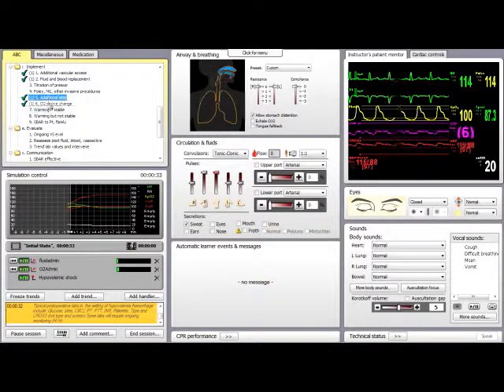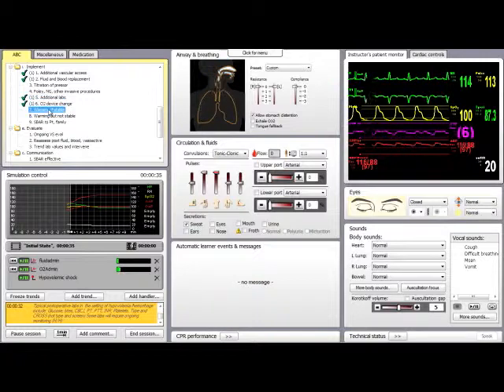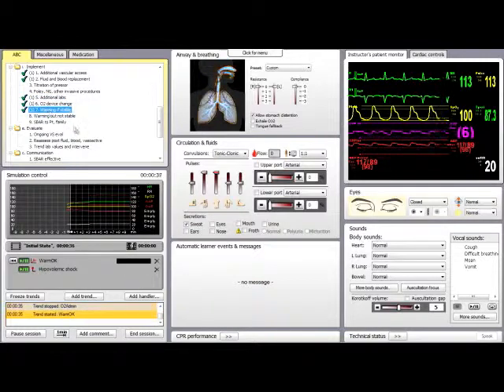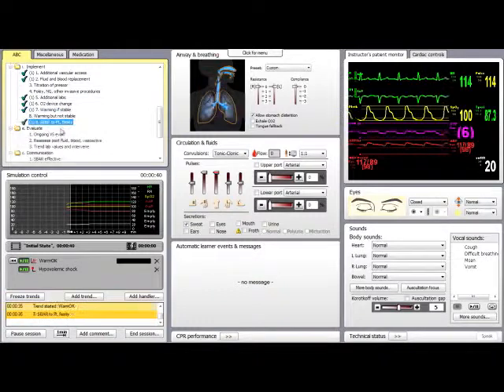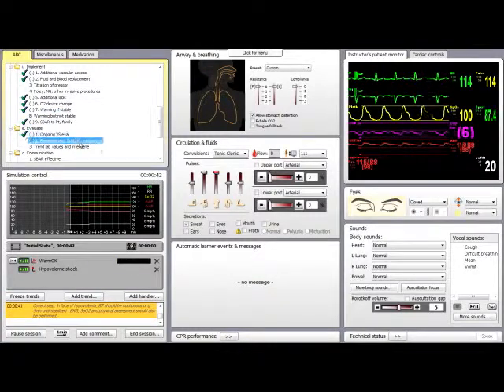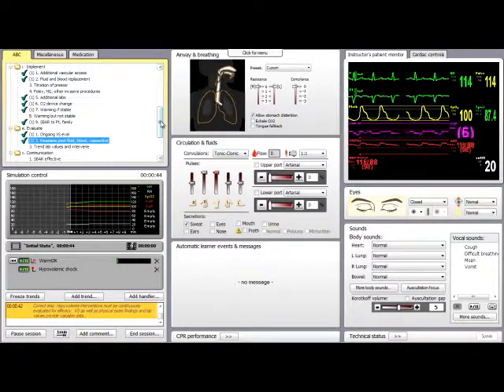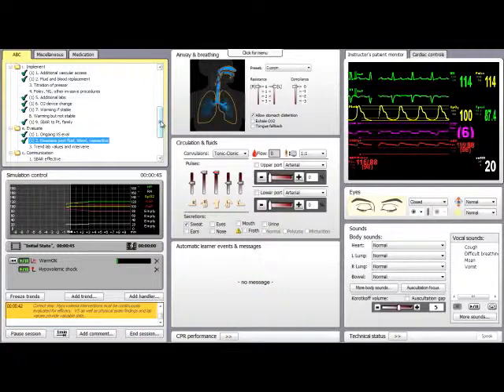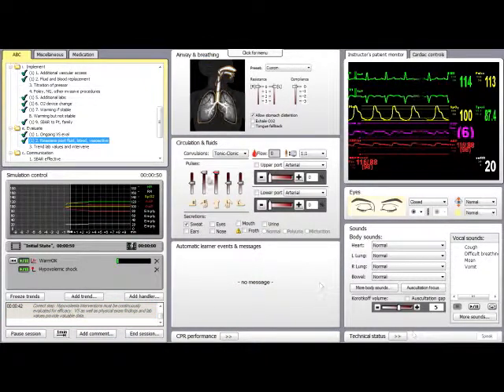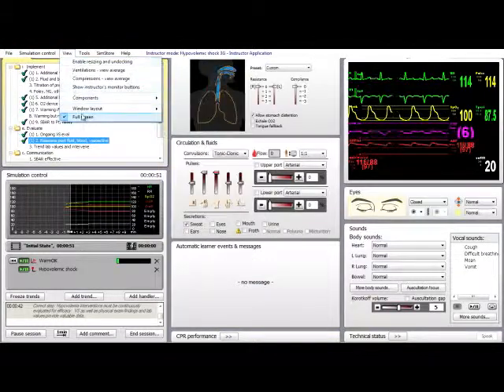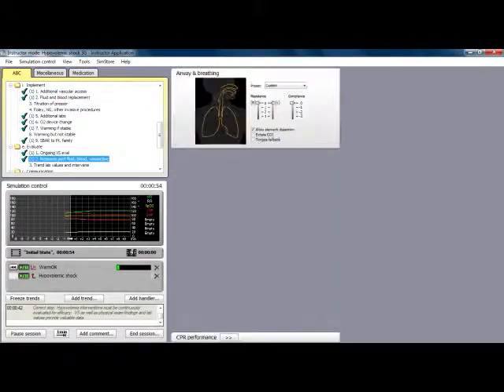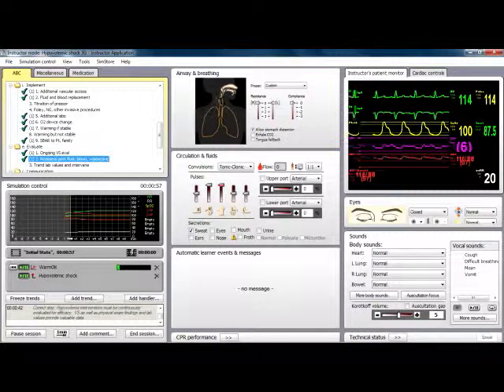Any comments, anything that was in the original handler especially, we would want to double check. And I think everything looks like it converted properly. And then if it didn't, I would just go back in and try to make any other changes.